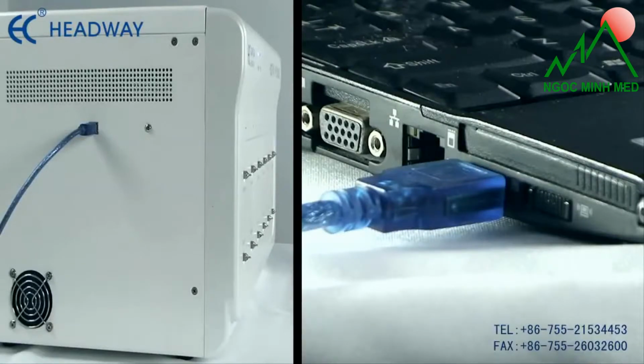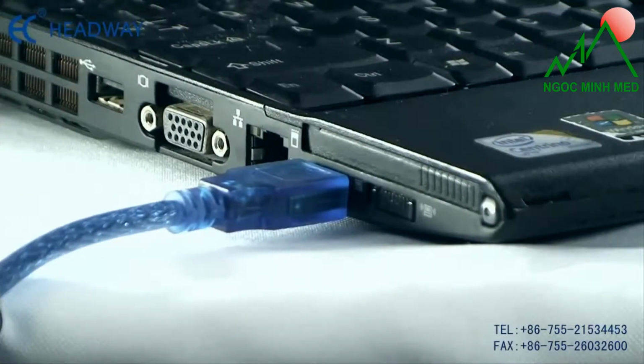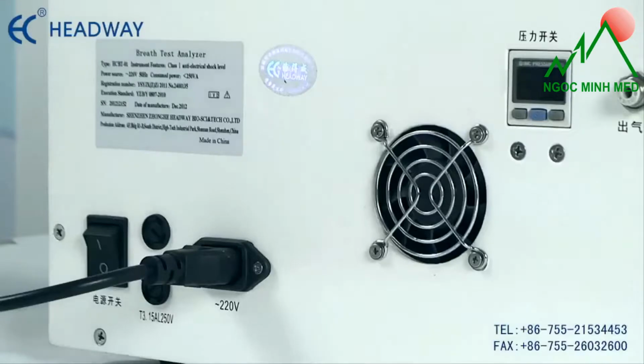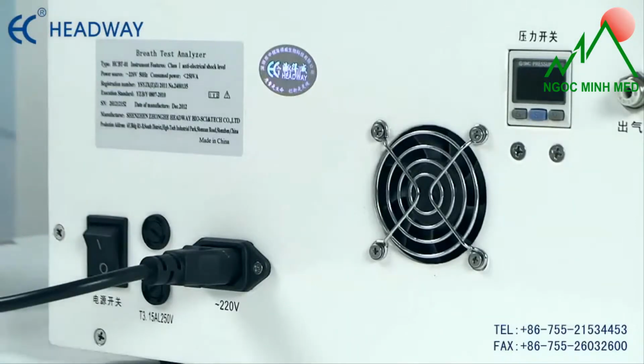Start the instrument mainframe and run the program. Connect the instrument mainframe to the operating computer by using the USB communication cable. Turn on the user computer. Then turn on the power switch of the instrument mainframe.